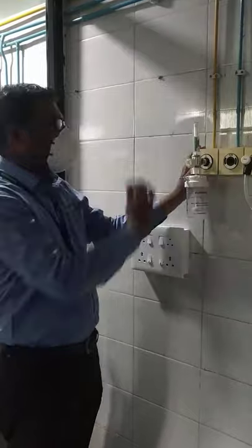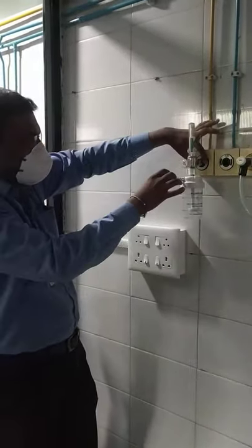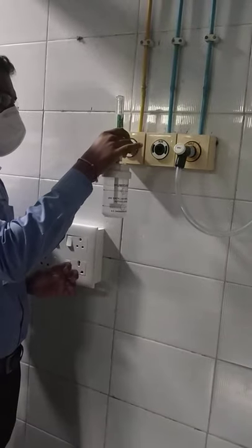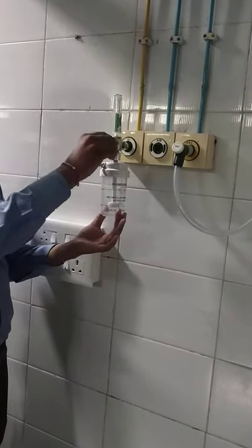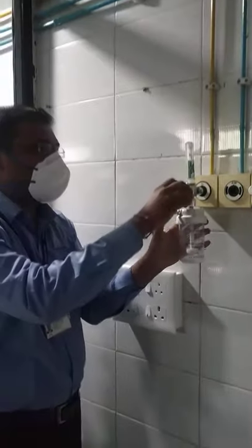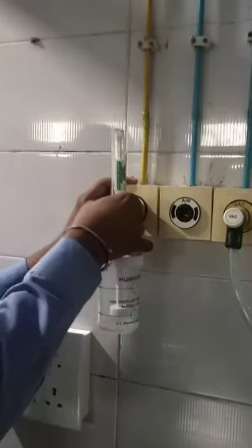To remove the humidifier bottle, you just press like this — pushing and releasing. We have two positions. This is called the parking position — you will not get oxygen. And this is the fixing position — this will give you oxygen. With the help of this knob, you can adjust the flow. Maximum you can do 15 liters per minute flow.